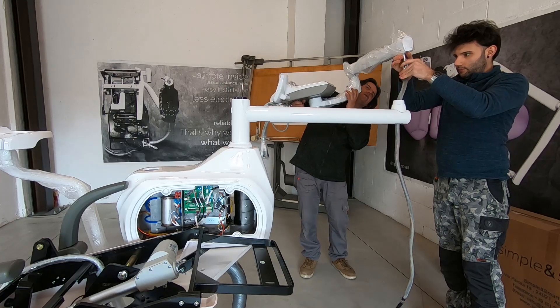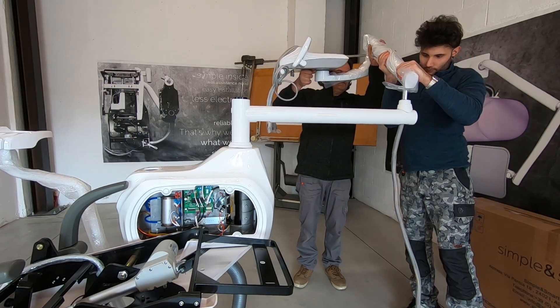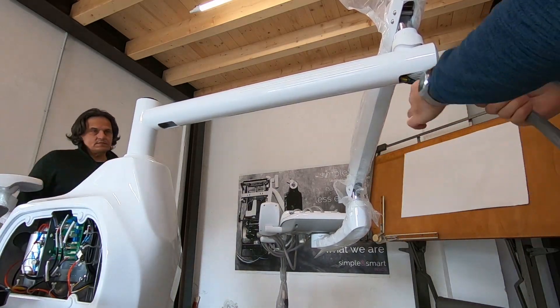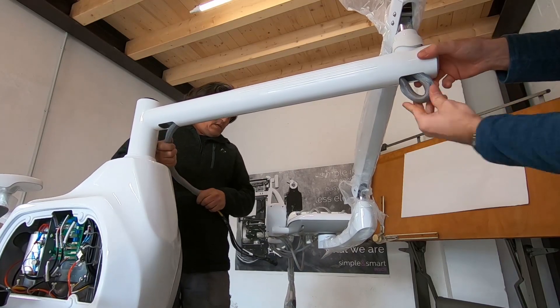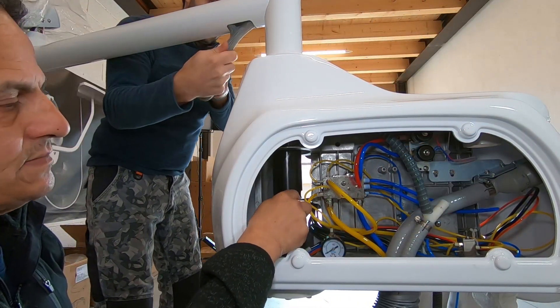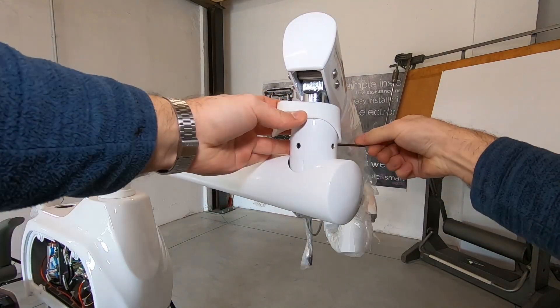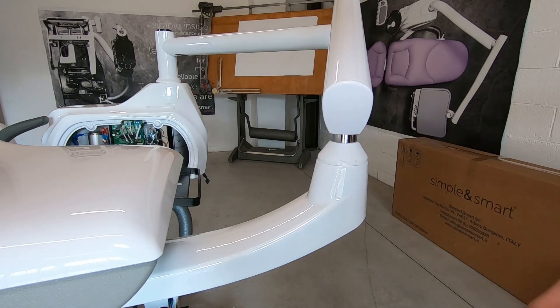Check the silver ring. Insert the tubes and the cables into the doctor tray arm up to the water unit. Fix the doctor tray second arm. Put the set screw in the doctor tray arm.